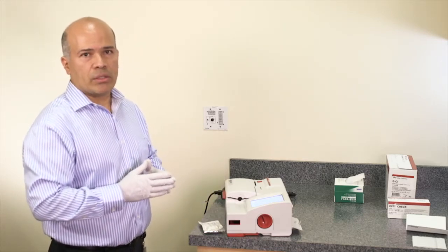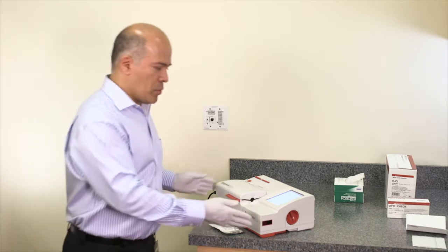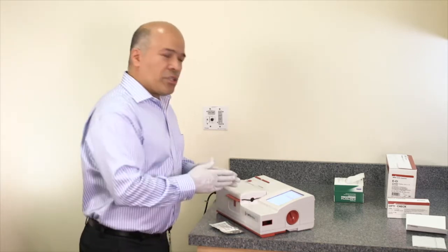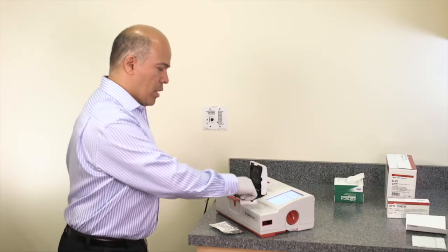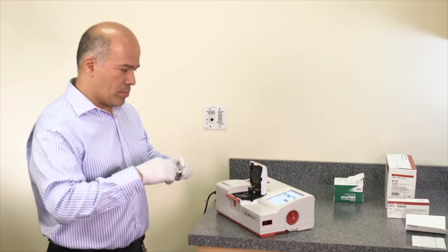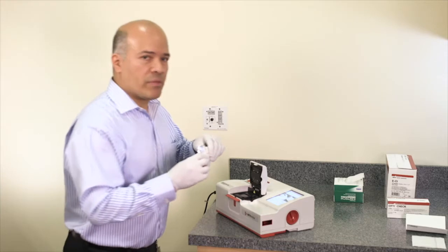The tests last about two minutes. Once the test is finished, the SRC shows the results on the screen, indicating that all sensors pass, and instructs the user to remove the cassette. To remove it, open the chamber by pressing the red button, remove the cassette, place it back in the pouch, and return it to the cassette compartment for future use.